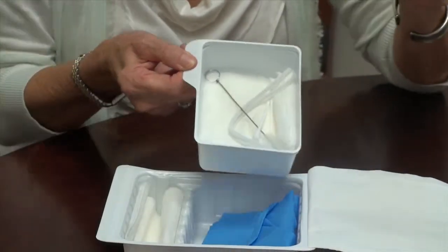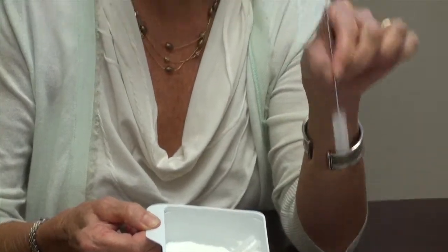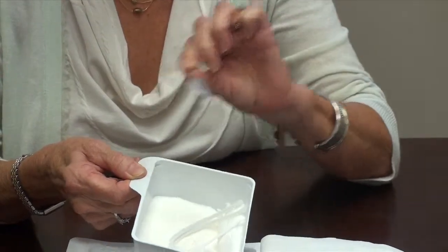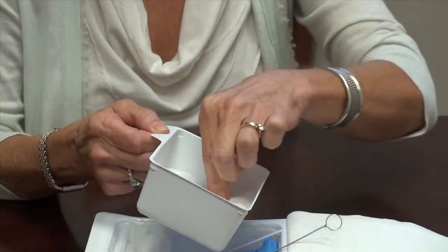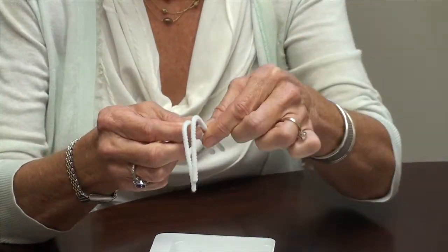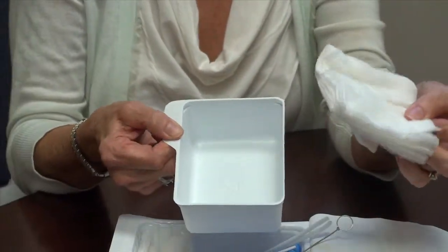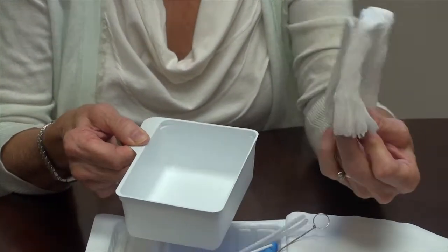In here we also have a little brush that you can use to scrub your trach to get off some of the bigger pieces of secretions. You have a q-tip that you can use to help clean, and there are two old-fashioned pipe cleaners to help clean the trach itself. There's another q-tip, and then you have four-by-fours that you can use to either put around the trach itself or just as pads if you need them.